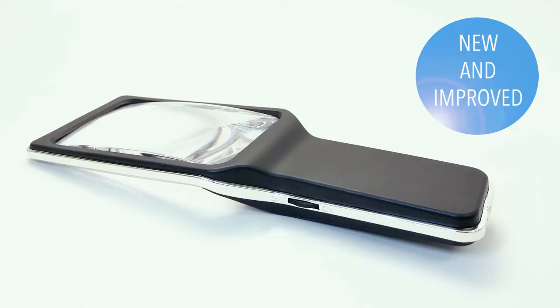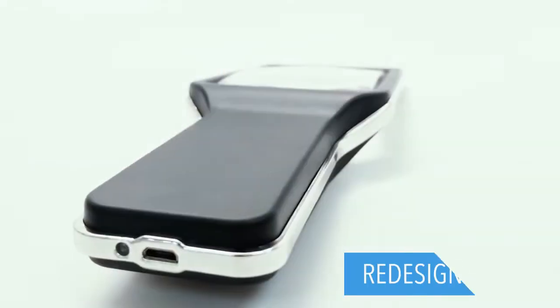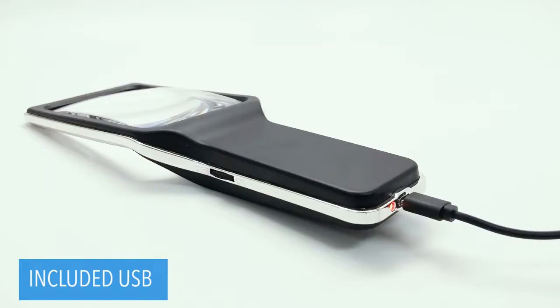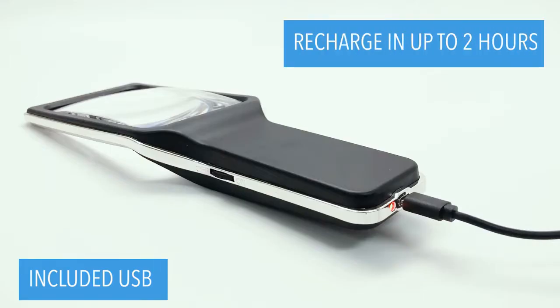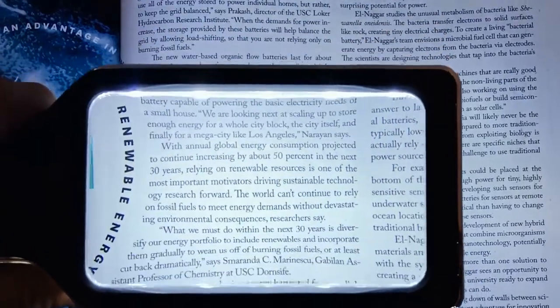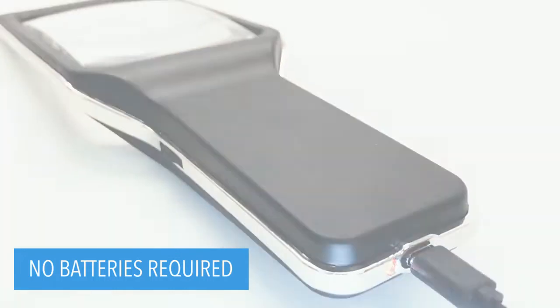Struggle when reading small fonts? We would like to introduce you to the redesigned LED magnifier. You can recharge it in just two hours with the included micro USB cable for up to 12 hours of powerful, non-diminishing brightness from the premium rechargeable battery.